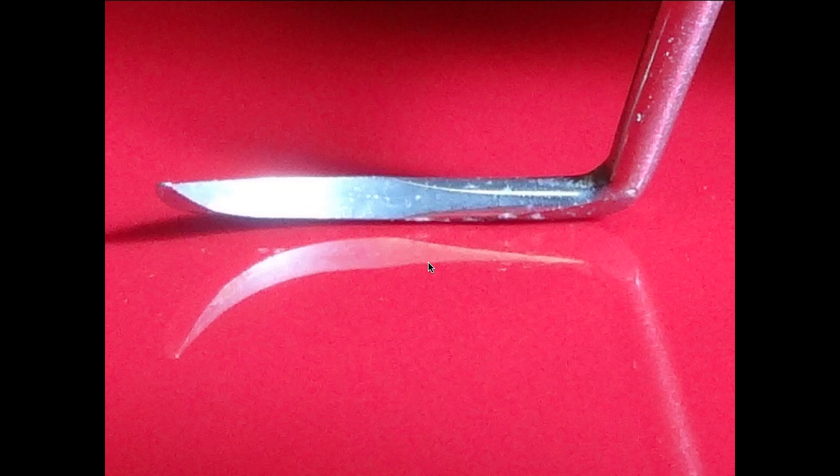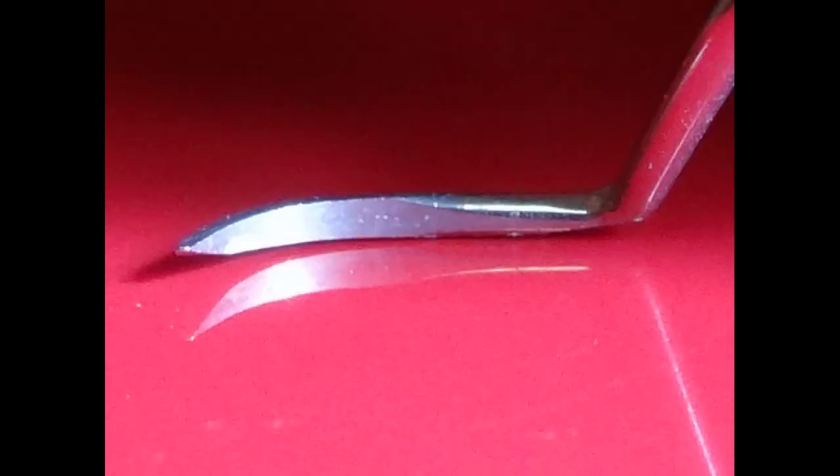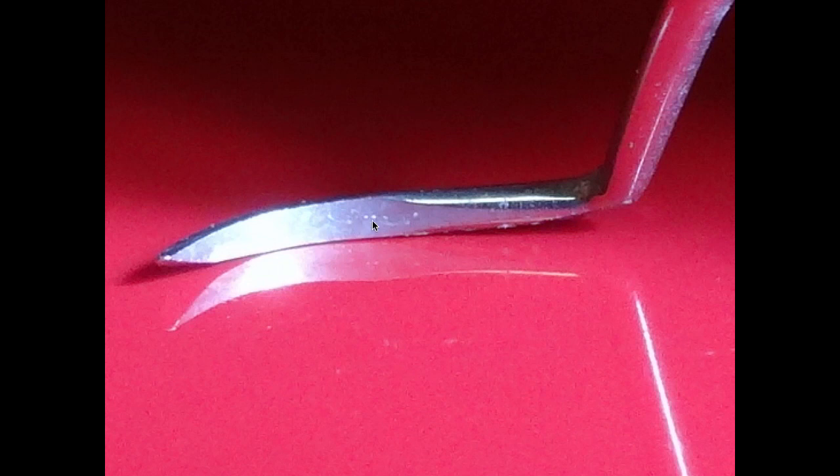You can see where we've closed that gap. Here's the edge of the instrument at the heel where we're going to sharpen. We've closed that gap — that's what you're after against the sharpening stone. You want to work your way all the way to the tip of the instrument, sharpening four or five times as you go. Basically about 15 to 20 total passes is plenty to sharpen that instrument.